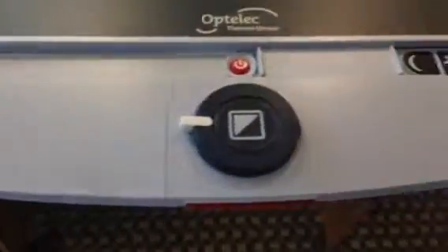This is one of our showroom display items, but as you can see, no scratches or scuffs on the screen. The XY table is in immaculate condition.